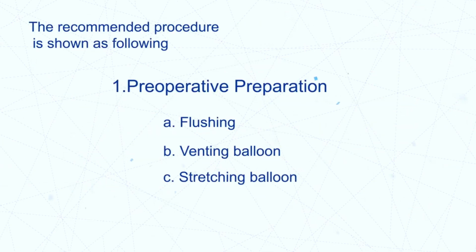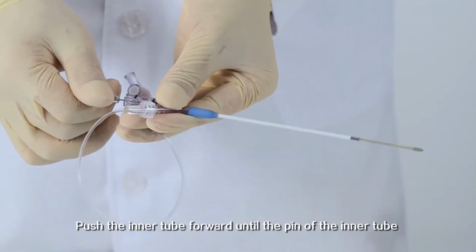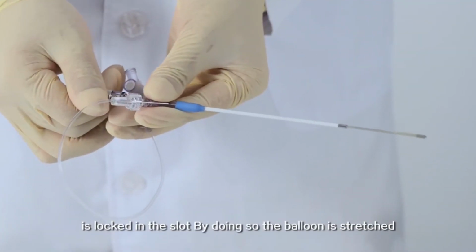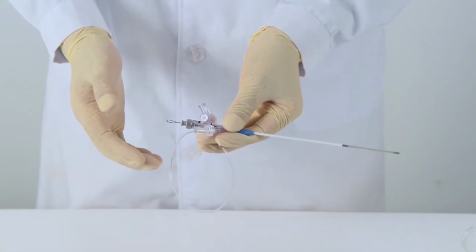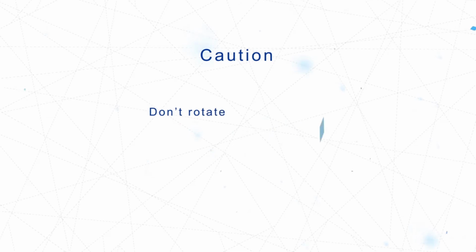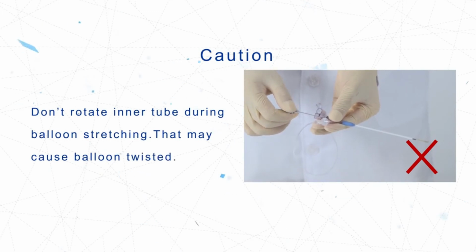Stretching balloon. Push the inner tube forward until the pin of the inner tube is locked in the slot. By doing so, the balloon is stretched. Caution: don't rotate the inner tube during balloon stretching. That may cause the balloon to twist.